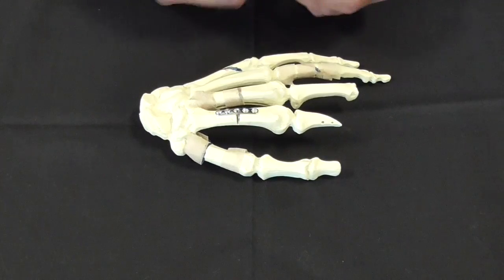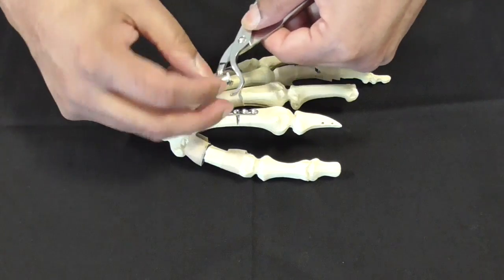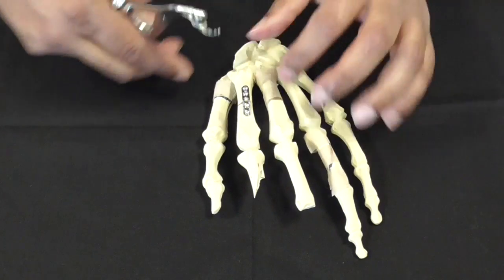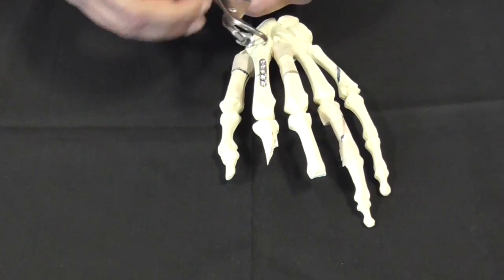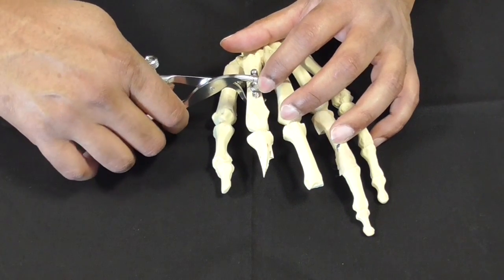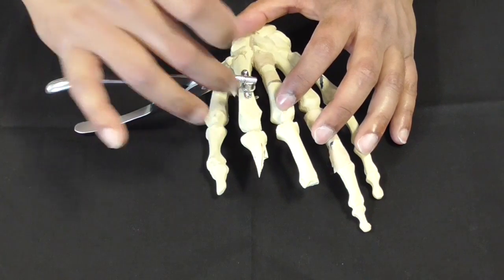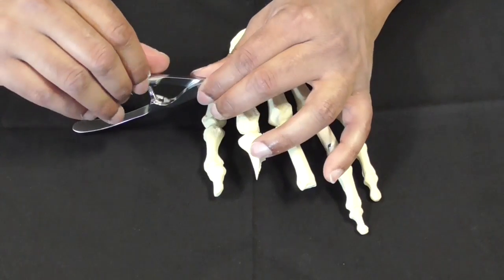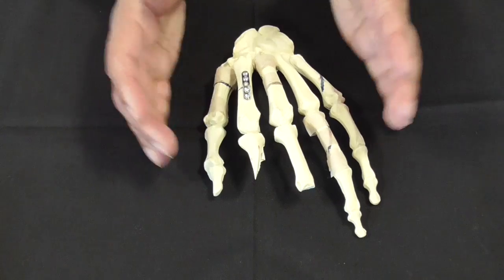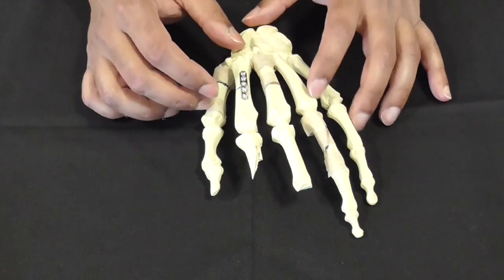Because the plate is onto the second part of the bone, it stabilizes the whole thing. You use this lovely device called a plate holding forceps which has this bit for the bone and this grooved bit that fits onto the plate. We've got our plate on here, you put that on there and then you tighten it up. Now you've got the fracture stabilized. You can then put your screw through here, that'll stabilize your construct, and then you take that off and put the rest of the screws.